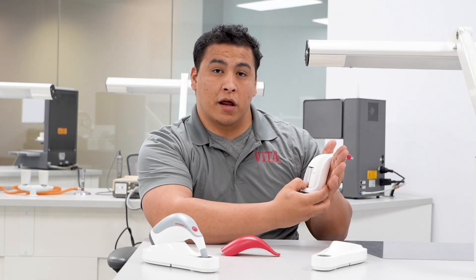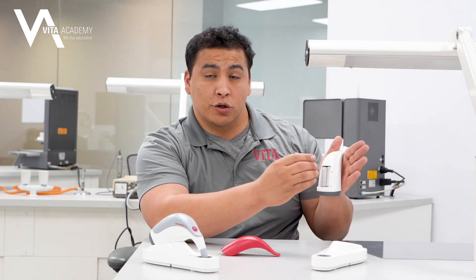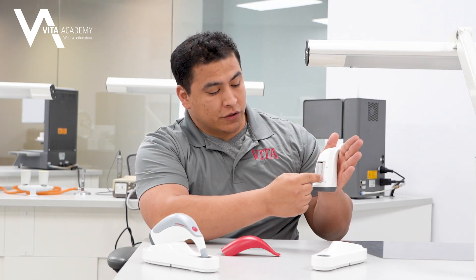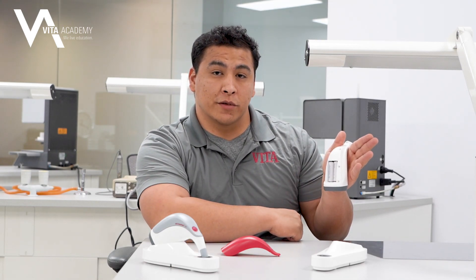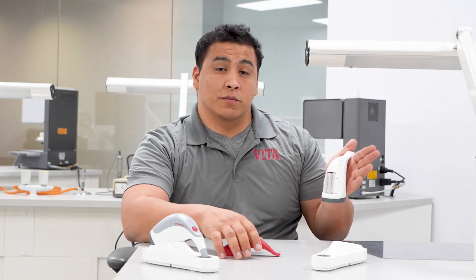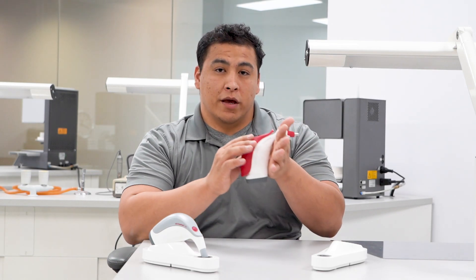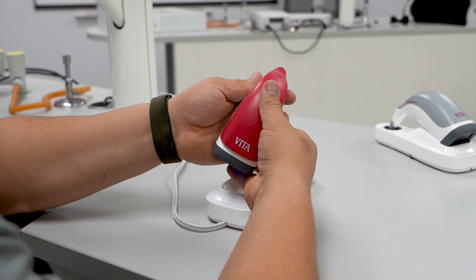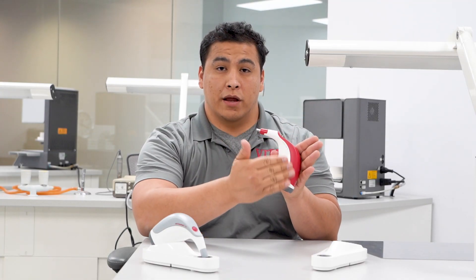If you're having any concerns where you're not able to turn on your device or it doesn't seem to charge properly, one of the first things we recommend is to remove that cover and give a gentle push on the back of these batteries just to make sure they're firmly seated. They can become dislodged if the unit is jostled or dropped, and we find that resolves many of the issues people experience. To replace the cover, just push it right on.